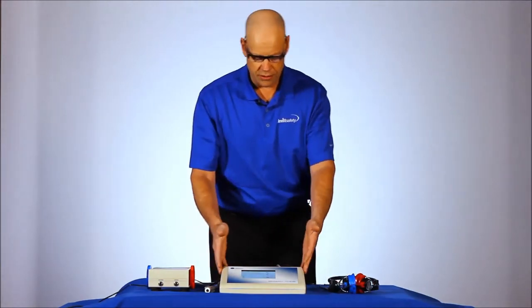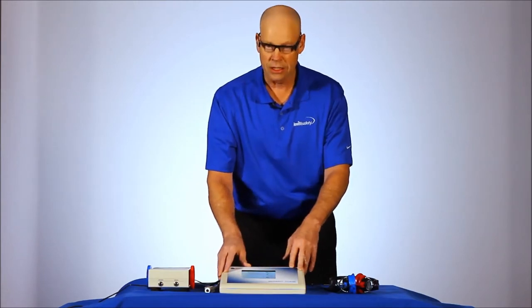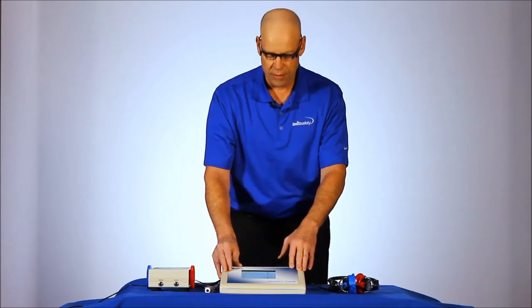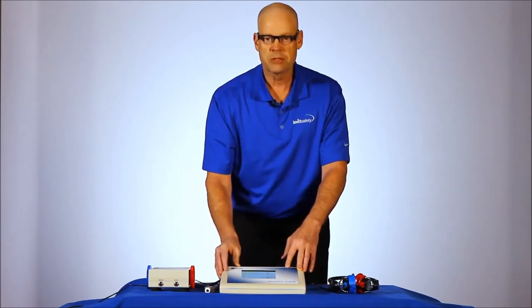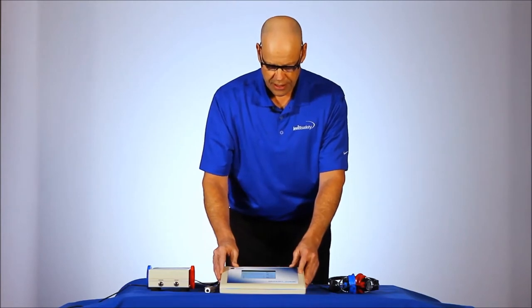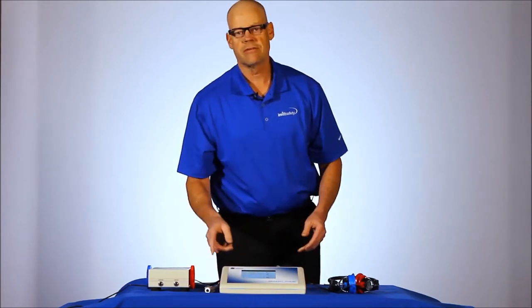First thing you'll notice right away is it's a fully interactive touch color screen, which makes setting the test up, performing the test, and so on much more easy and simple for the user of the device. I'm just going to walk you through the features of this unit.